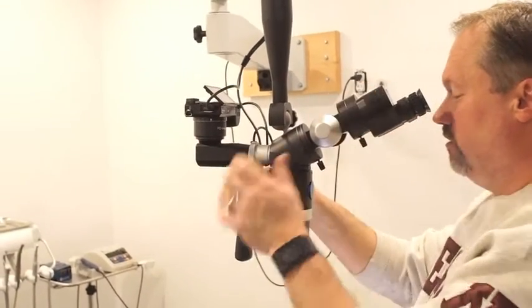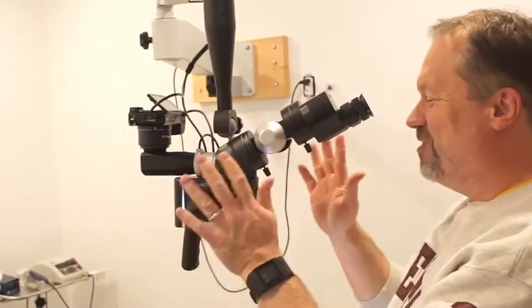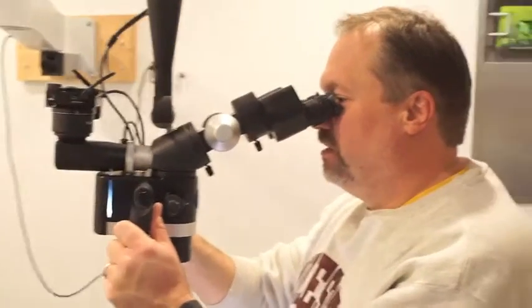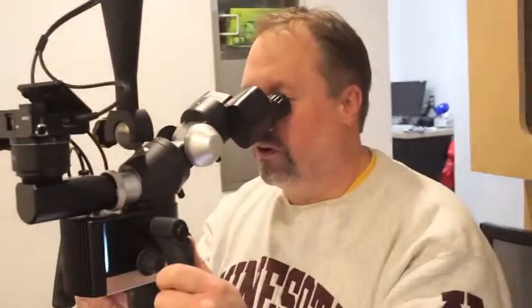How about the control knobs for the magnification? They're totally in the right place. It's funny, I'm already kind of used to where they are. It took me almost no time at all. They're all in the right place.